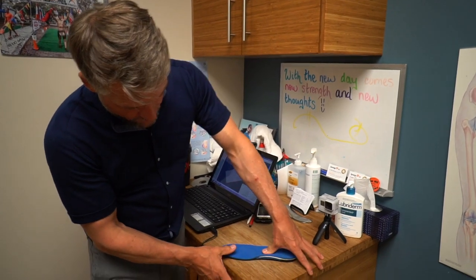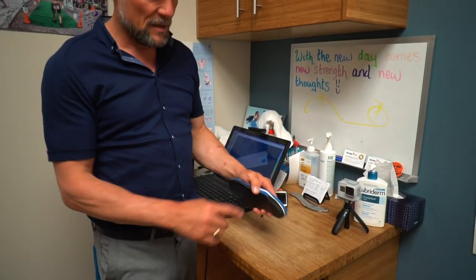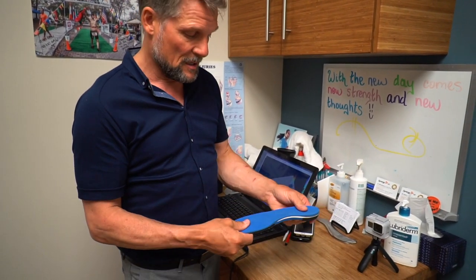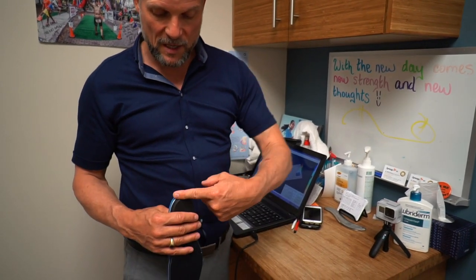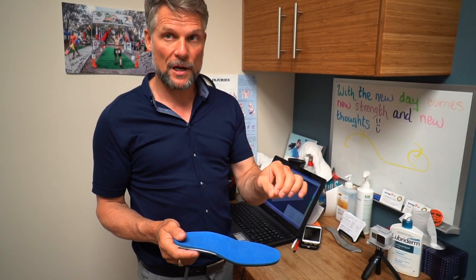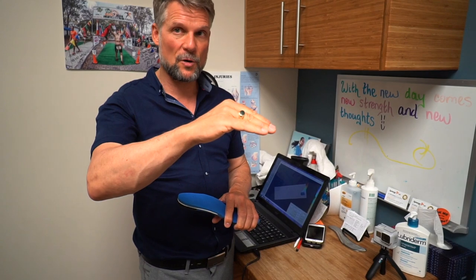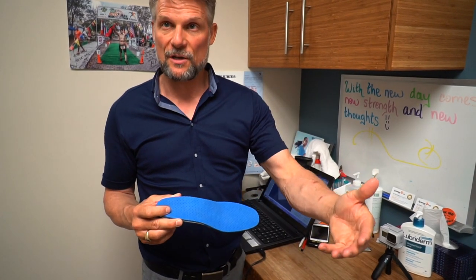The newer semi-rigid orthotics that most chiropractors and physios use today have a little bit of flexibility — some give — with an arch fill to make sure the arch never totally collapses, even if they wear out after a couple of years. This one has a heel lift for someone with a shorter leg. There's cushioning, arch support, and if needed we can make a wedge shape under the heel or lift one side. Custom orthotics allow us to correct biomechanical faults where they're occurring, whereas off-the-shelf orthotics generally just provide arch support.